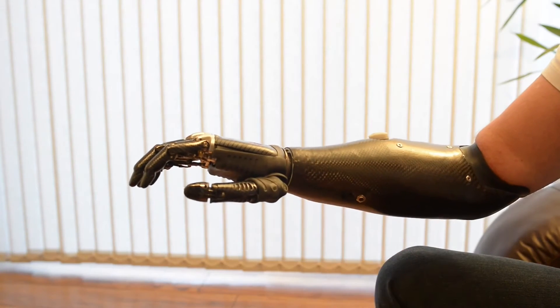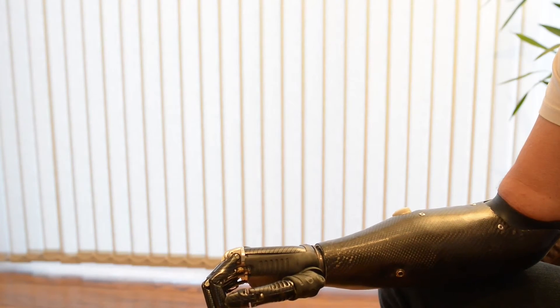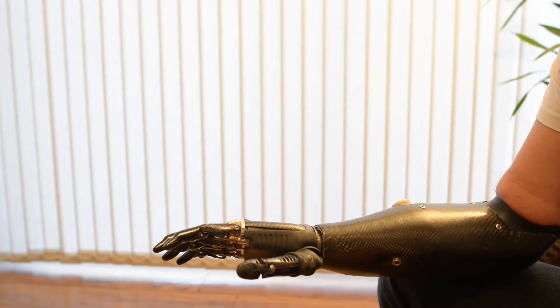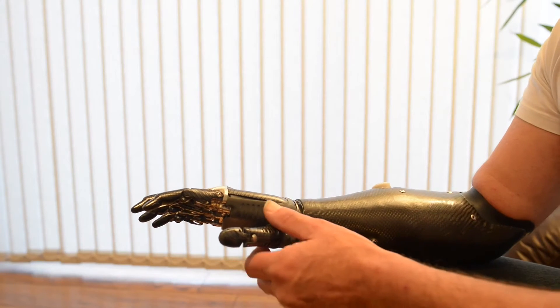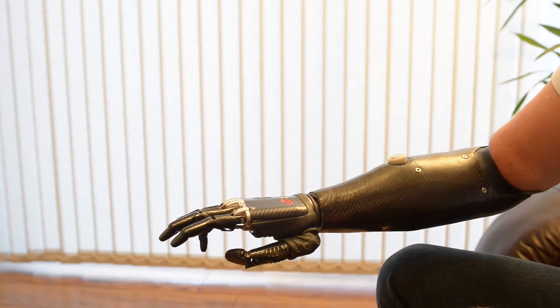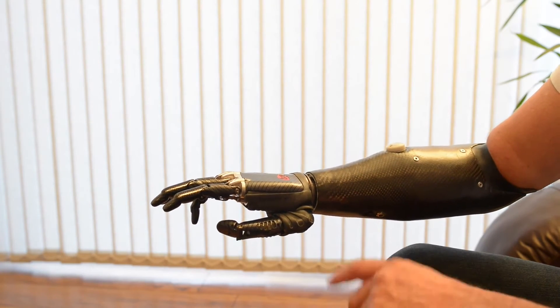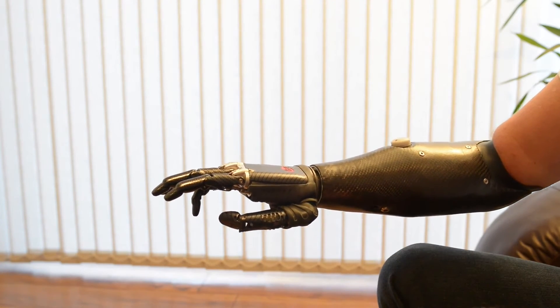Have a relaxed grip — this is so that when you walk down the street it just looks like a normal hand. You can close it a bit further if you want to. And then we have a mouse grip. This will hold a mouse — single click, double click. And they're developing this now so that you'll soon be able to drag and drop.